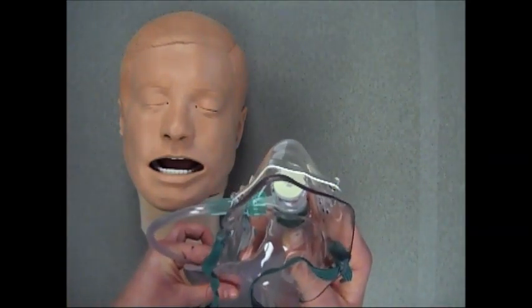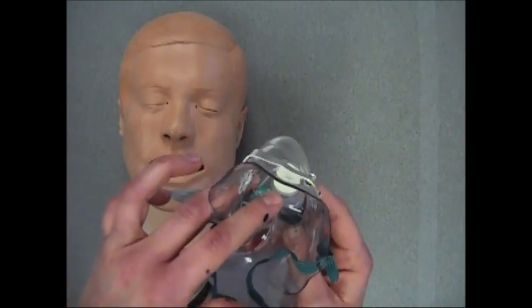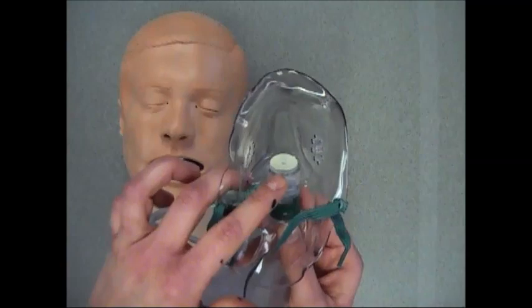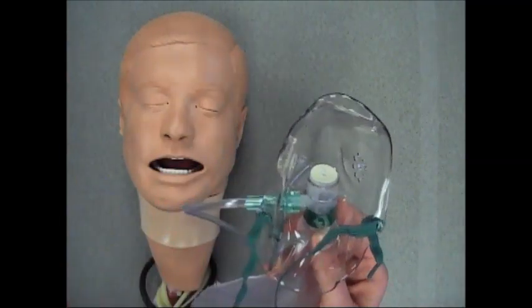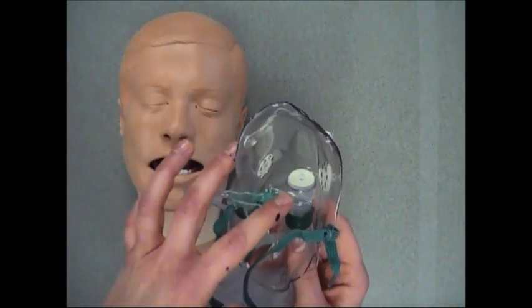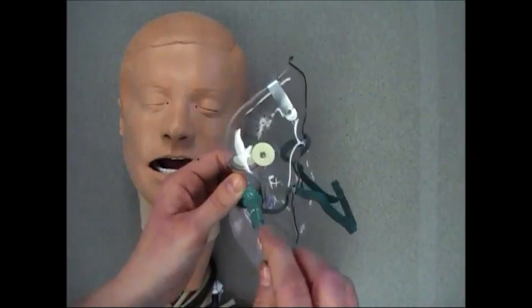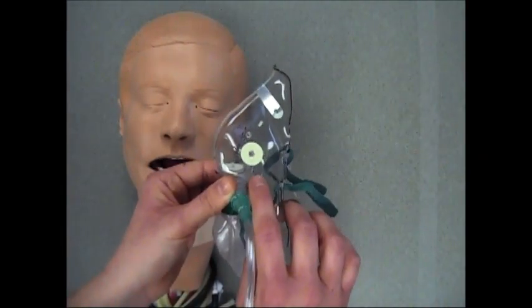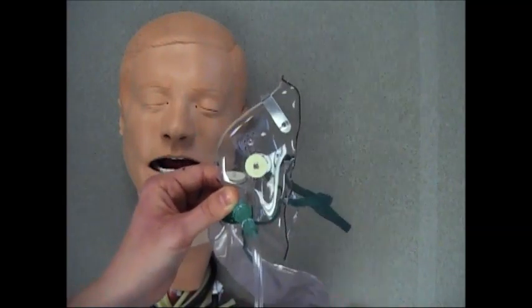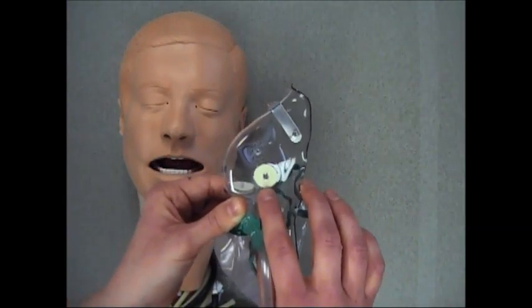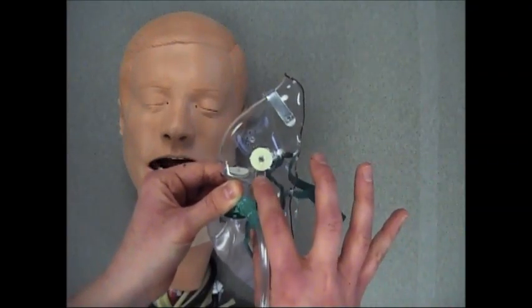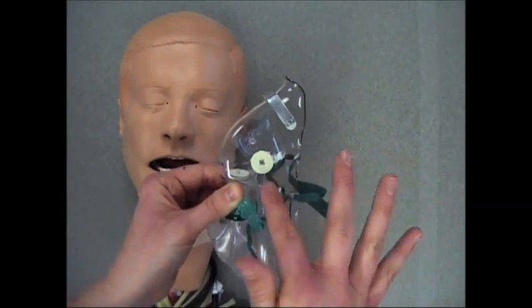As the patient breathes in, the valve opens. As the patient exhales, that valve closes. There is also another one-way valve on the side here over the exhalation port. As the patient breathes in, this valve closes. As the patient exhales, it opens, allowing that exhaled air to go through this port.